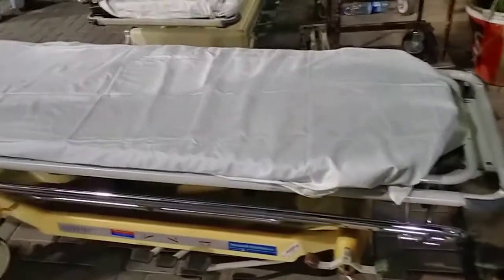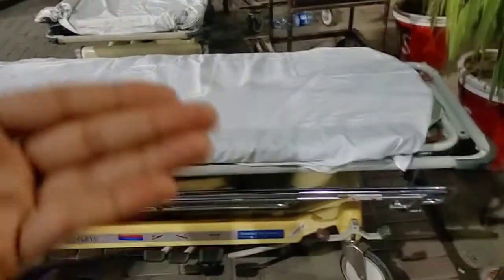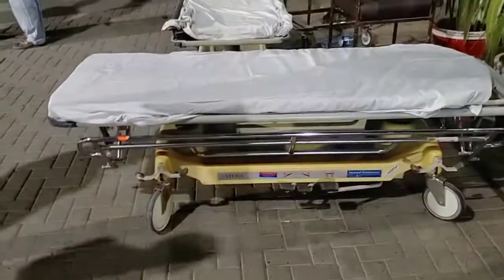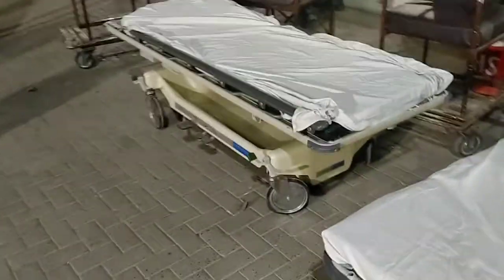When you have to transport the patient, you take the stretcher and take the ambulance — you slide the patient and take it back. This is the advantage. You see the wheels — this is a steel structure and aluminum. This is imported, and today we have 10 stretchers at the emergency room. The grill is a little different but it works the same way. This is the lever.